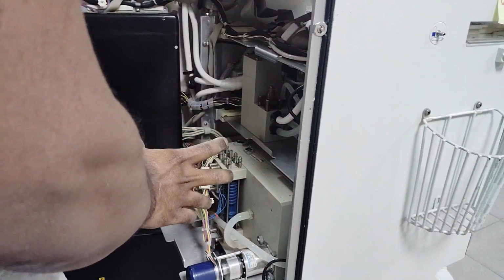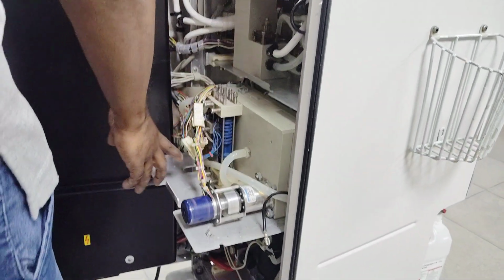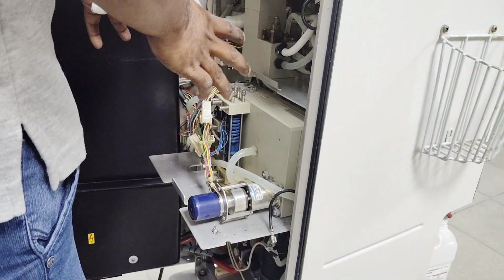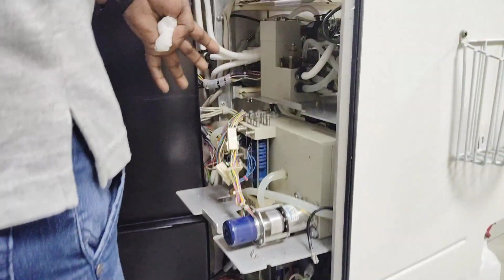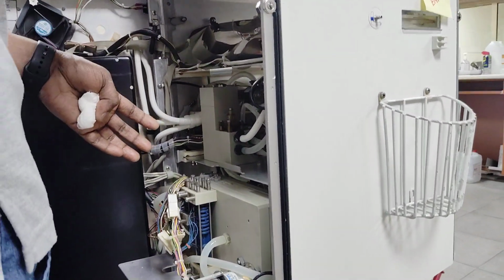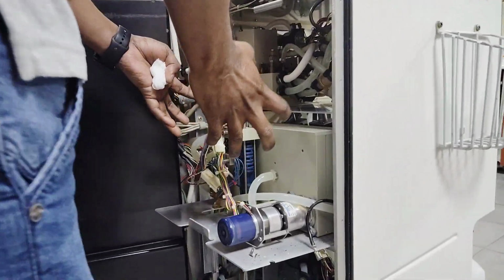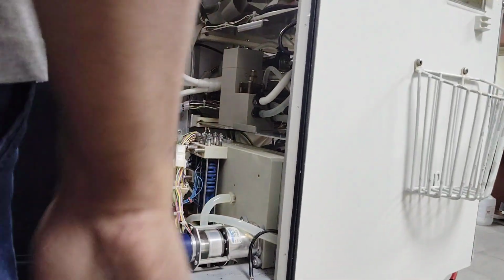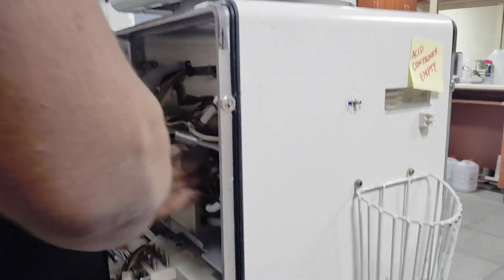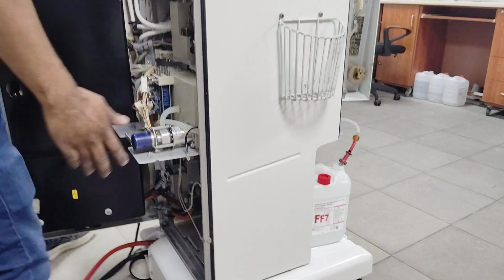After preparation, it will check. There is a conductivity sensor, a bicarb sensor, and temperature sensors over there, so this is checked. As per your program, everything is okay. Suppose you give the wrong concentration, it will give an alarm: your concentration is not okay. As per that, it prepares and sends to this track where the patient fluid is prepared for the patient's treatment.